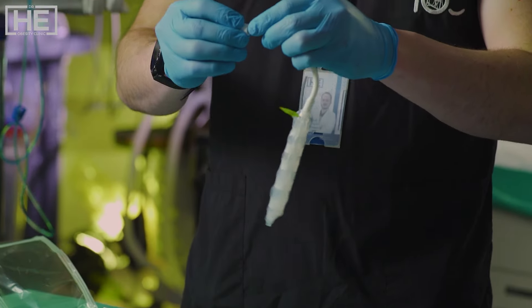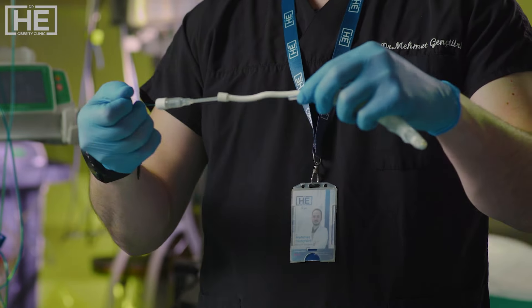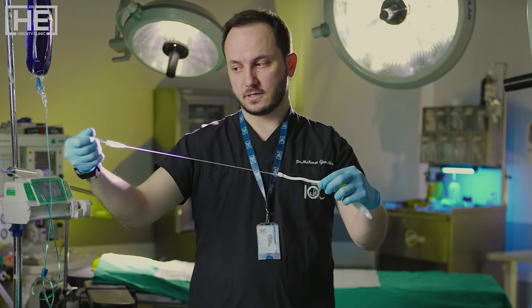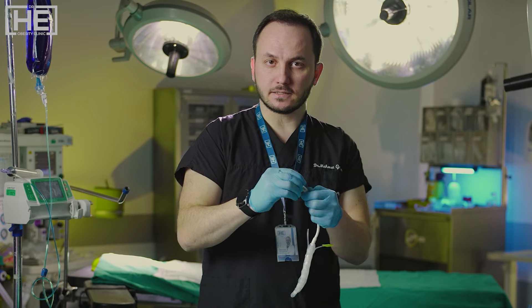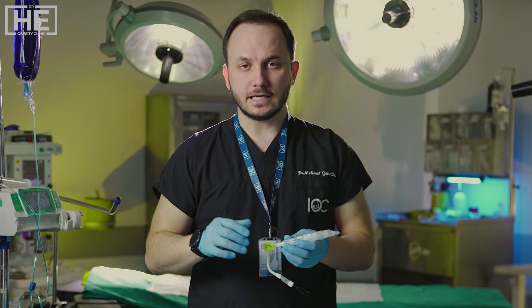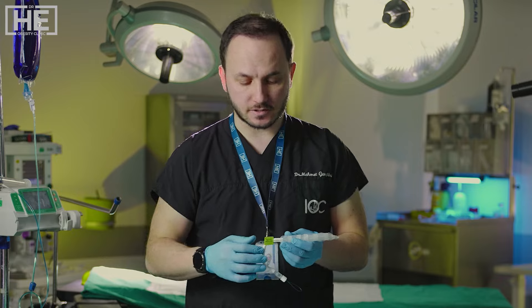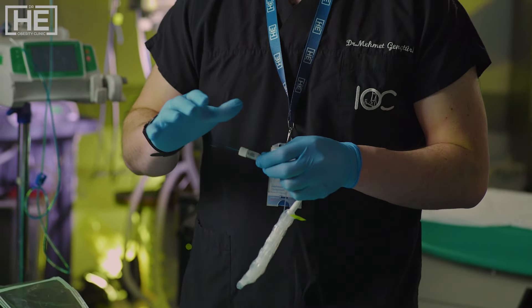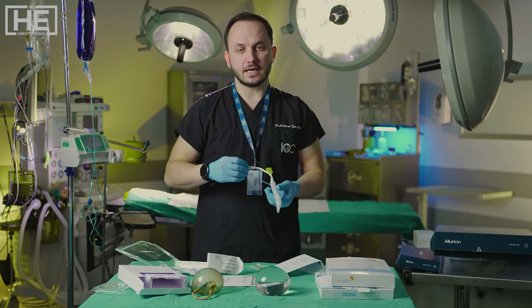This blue wire allows us — you see — to stretch and grab it, and take it outside. We can de-inflate or re-inflate. This balloon is unique because of this advantage. After a while, the balloon effect may diminish — it varies per patient, sometimes one month, sometimes three or six months. When weight loss stalls, we can take it out and re-inflate it, giving a boost effect. The time limit is one year.